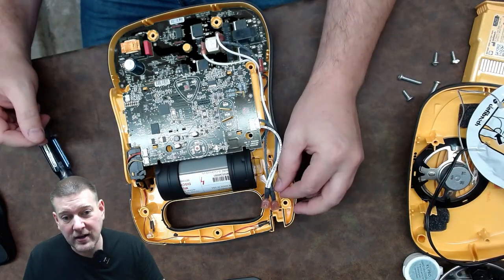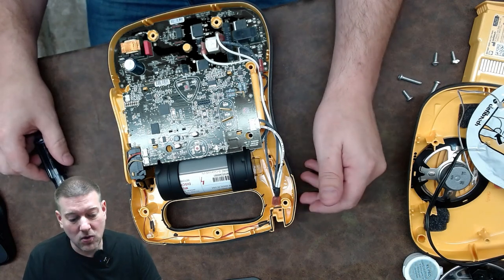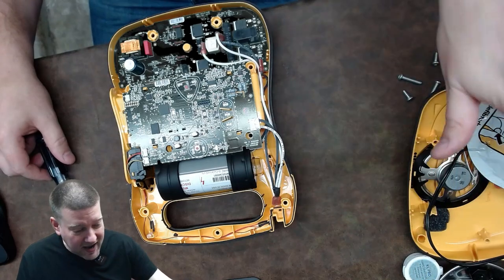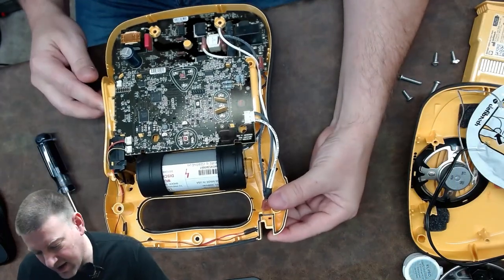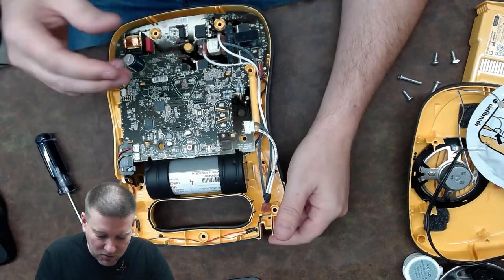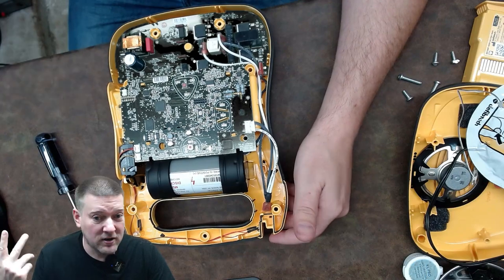This one may also have a compressions counter, which would likely be some sort of resistive network. As you depress the pads for CPR it keeps track of that. The logic board is also monitoring for any existing heart rate through the pads, and it will use that data to make a judgment call on the level of shock needed and whether a shock is required at all.